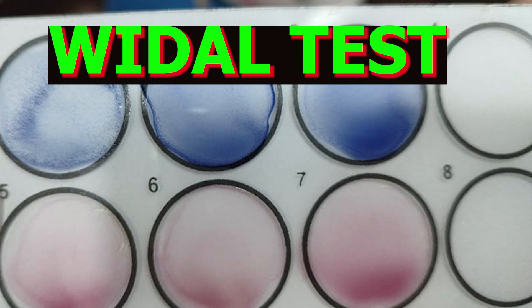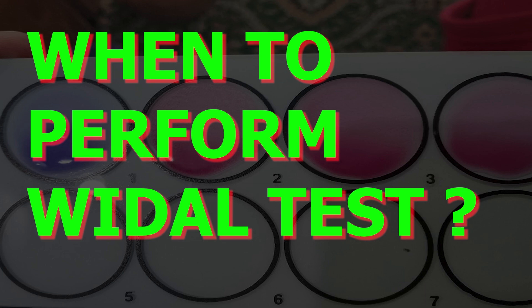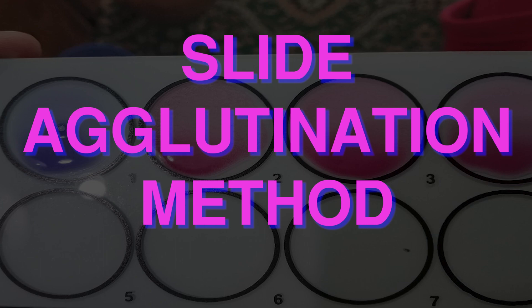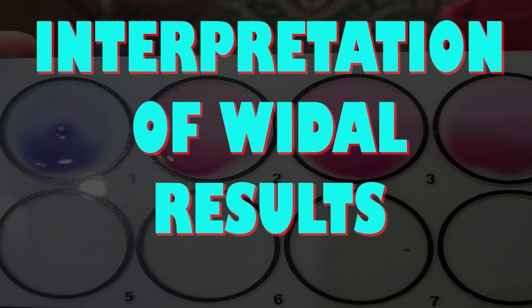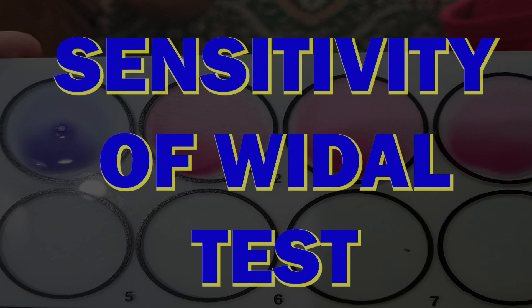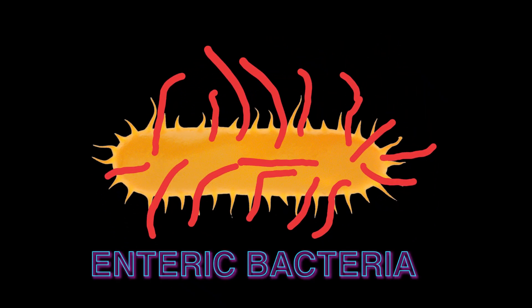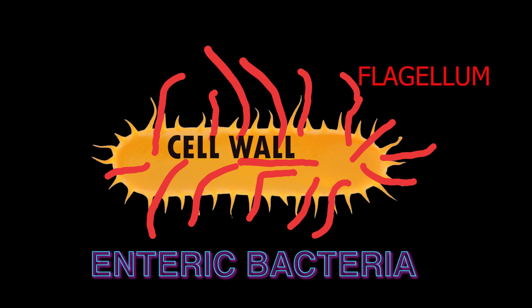Hello friends, welcome to Tech Quest channel. This is for the medical techs by your tech. In this video we will discuss about the Widal test: what is a Widal test, when to perform the Widal test, how the Widal antigens are prepared, slide agglutination method, tube agglutination test, interpretation of the Widal test, and sensitivity of the Widal test.